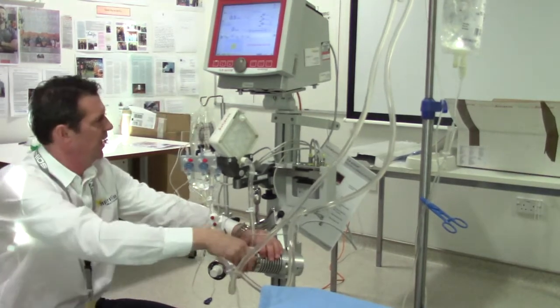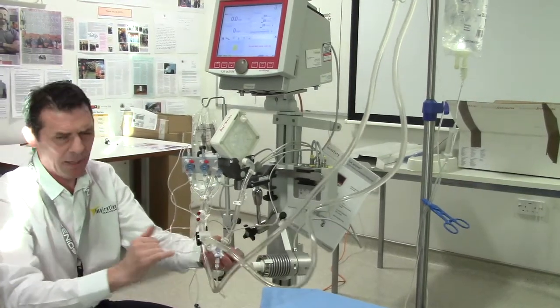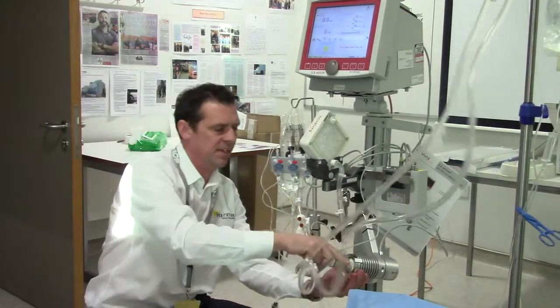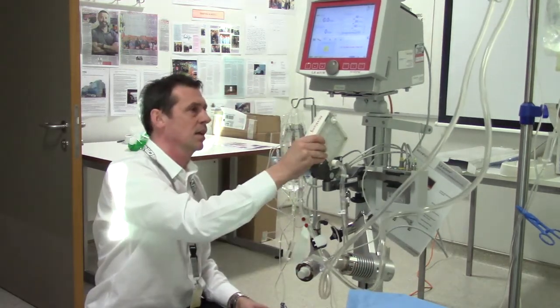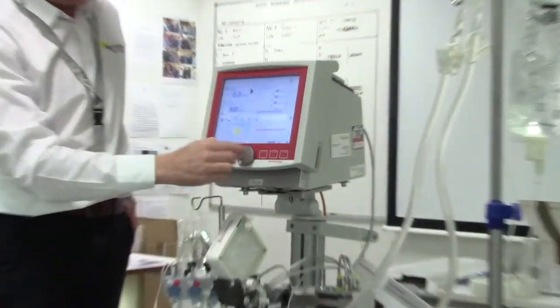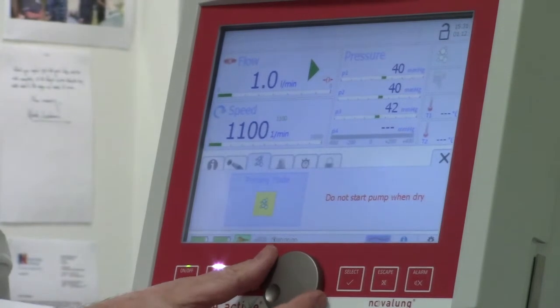I'm going to stop the pump now because I've introduced a heap of air, and I'm going to angle this a bit better to make sure I've got all the air out of the impeller. The risk is that if you have a large air bubble in there and blood meets it, it would freeze the system completely. Click it back into place, then pump light back on to activate the pump and turn your dial.